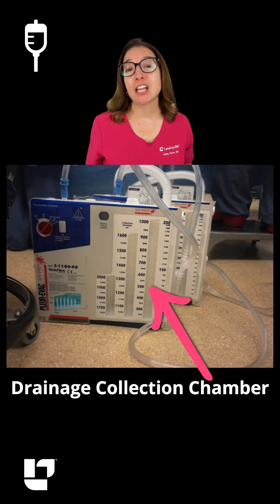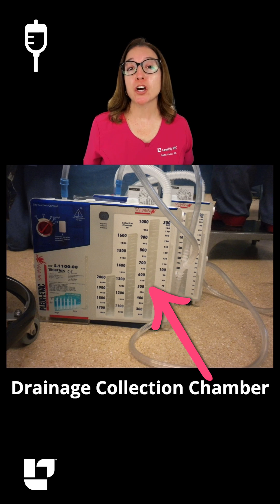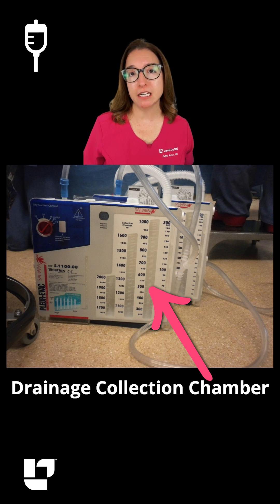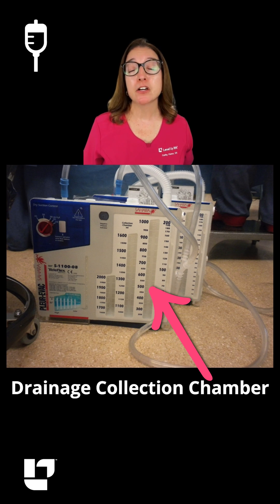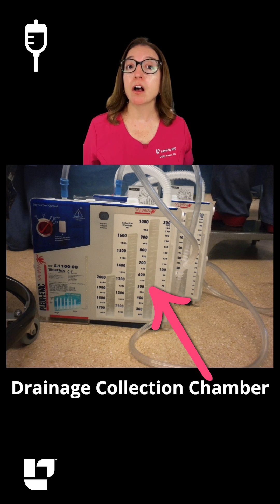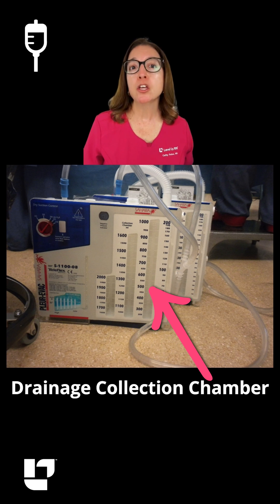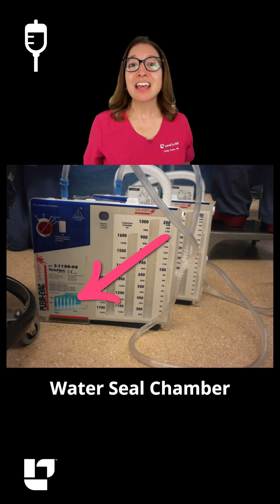This is the drainage collection chamber. It's important to chart the amount and color of drainage in this chamber. And if there is excessive drainage, such as drainage over 100 milliliters per hour, you want to notify the provider.